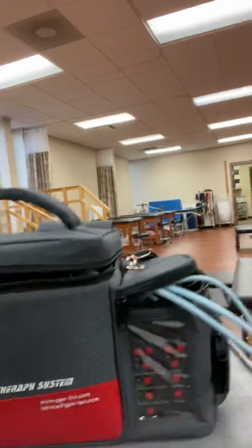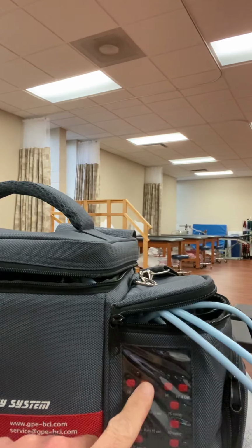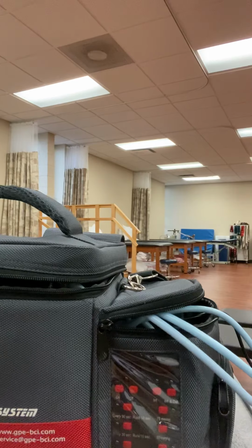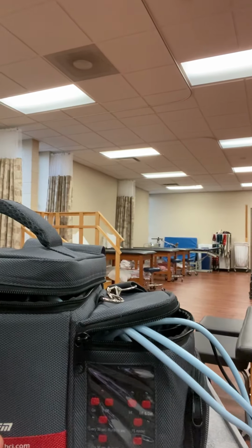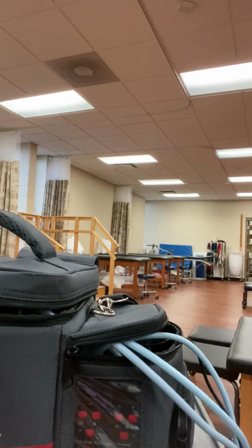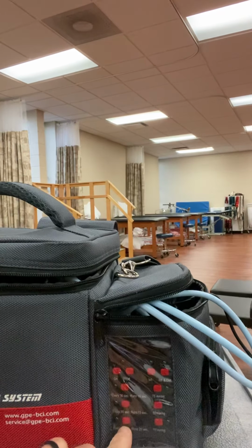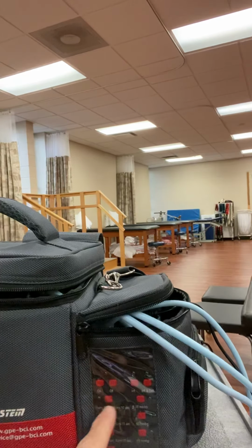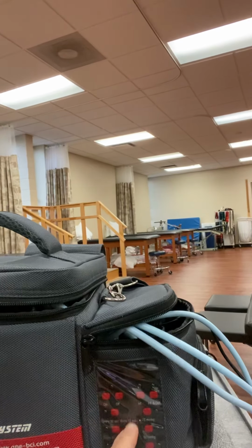Now, on our machine here, what I want you to notice is that there's some things going on here. Number one is an on and off. It also has an inflate and deflate. And you always want to select that inflate deflate, because after all, you're doing an intermittent compression, not a continuous compression, right? And so that's a critical thing. That means that it goes on and it goes off, and that's going to speak to our duty cycle. And we'll talk about that here in just a moment. It actually gives me options on running it every 30 seconds, and then every 30 seconds off, running for 10 seconds. That's the 3-to-1 magic ratio that we're going to talk about here in just a minute.